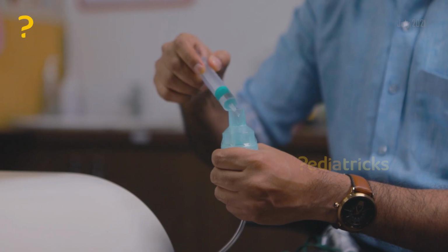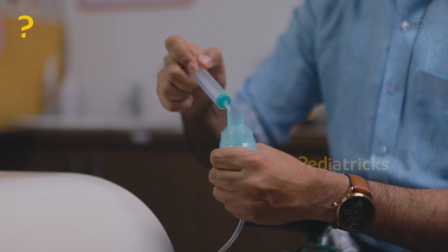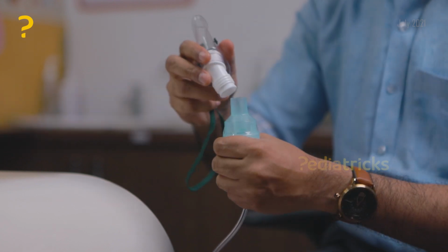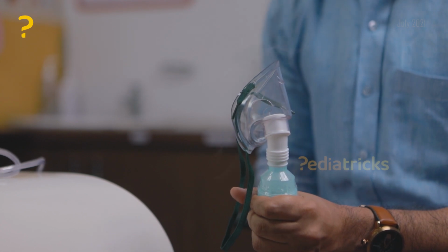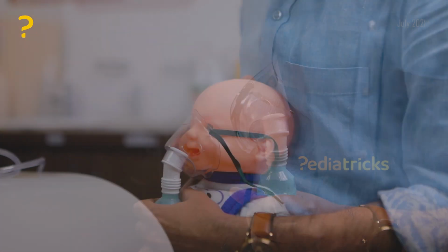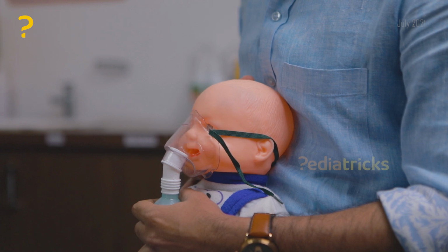A nebulizer is where a drug is instilled into a container and, through a mask, it is administered to the baby's face in a mist form. While using a nebulizer, first you should wash your hands, put the medicine in the nebulizer, connect the tube from the compressor to the base, connect the mouthpiece or the mask, turn on the compressor, watch for the mist coming up, and once the mist is there, put the mask onto your child's face.